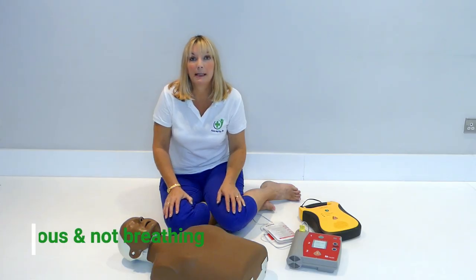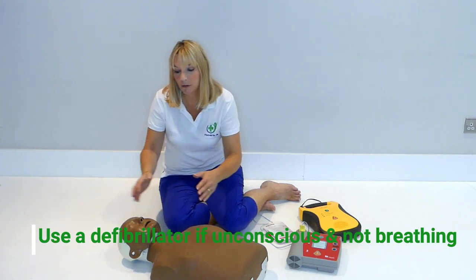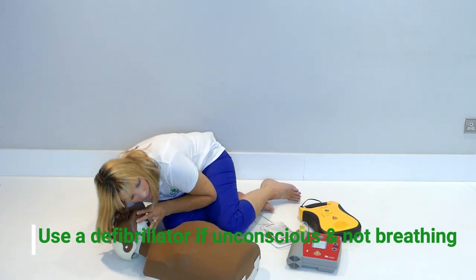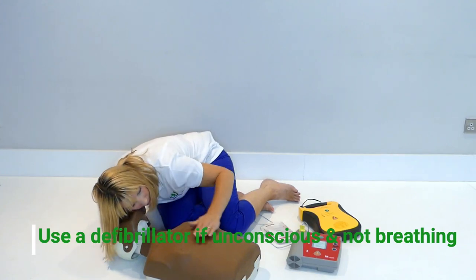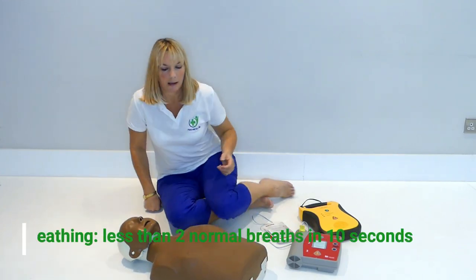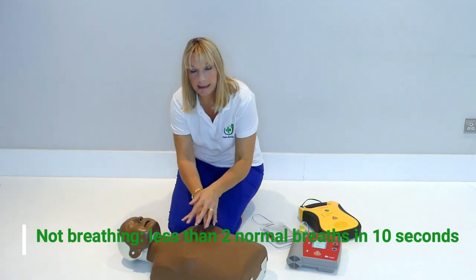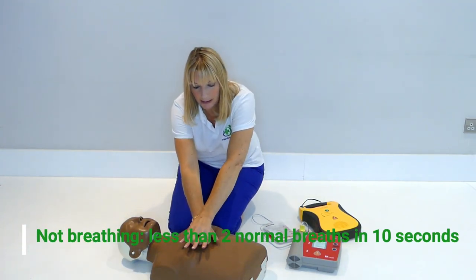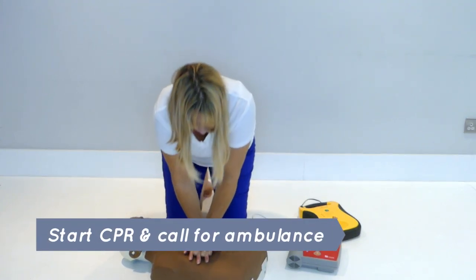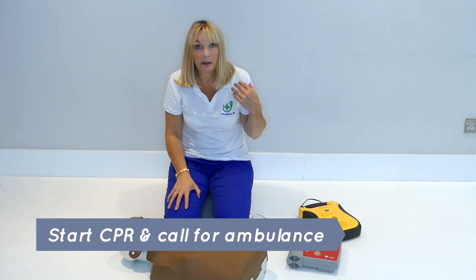You use a defibrillator if somebody is unconscious and not breathing. So you've checked the danger, you've checked the response, you've opened the airway, you've checked for breathing, and they're not breathing normally and they have less than two breaths in a 10-second period. You will then start CPR.